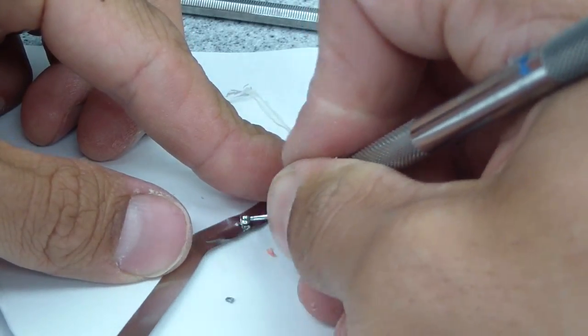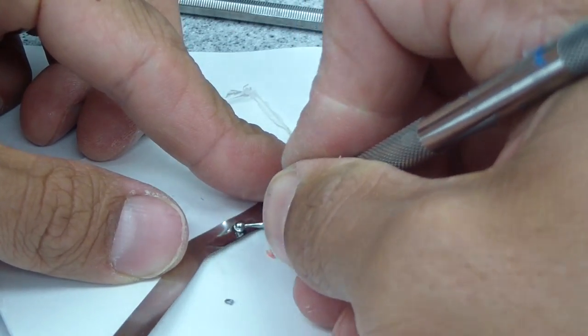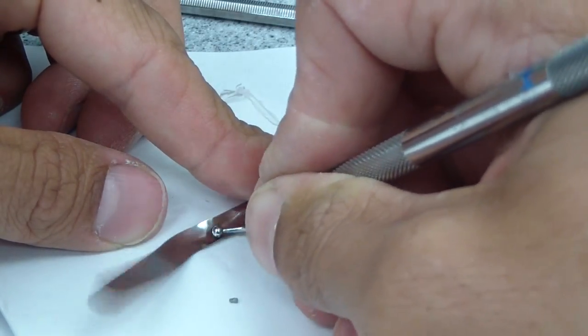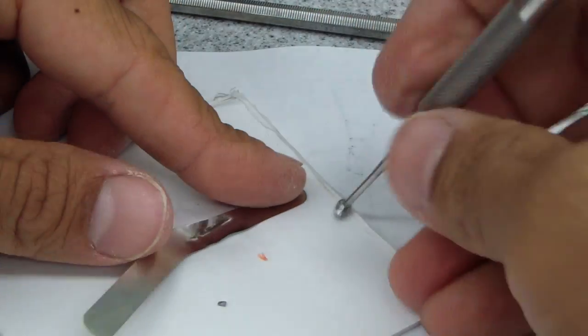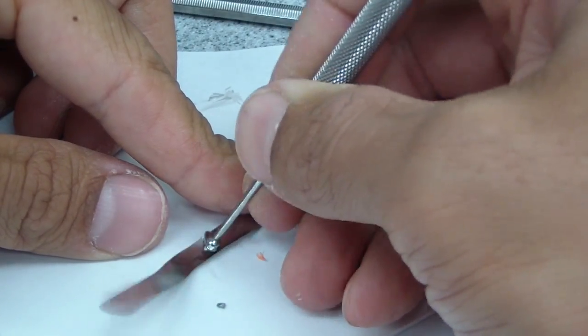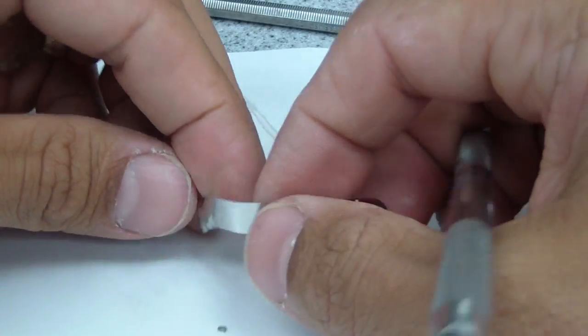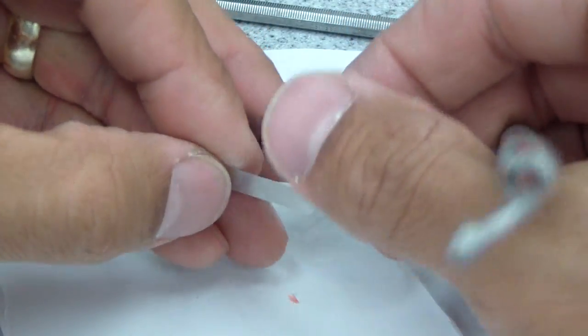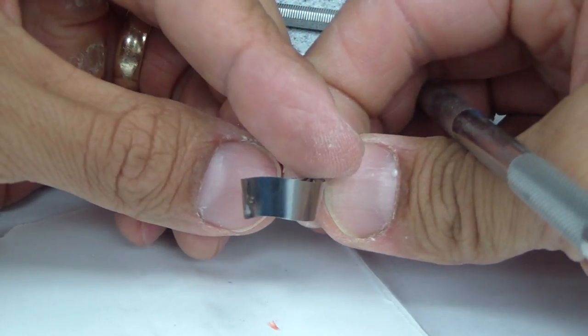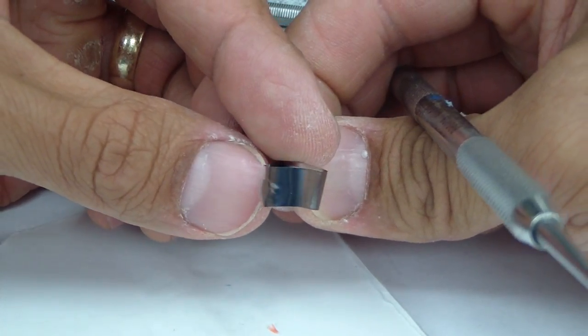You can hear it burnished. So some of the textbooks suggest using a small one to develop that contour and then a larger like an acorn burnisher to remove any of the little craze lines that may be created. And then we'll just smooth that out. That'll be our gingival portion. Let's see if we've done anything here. Okay, so you can see it just subtly there again, just that contour now. And you can get these in pre-contour bands.